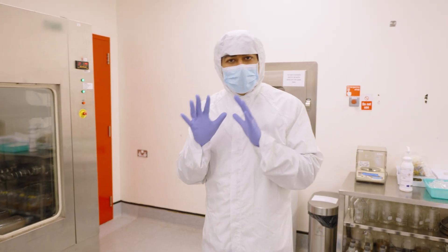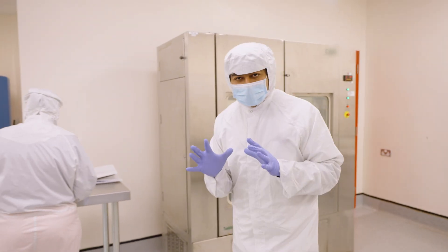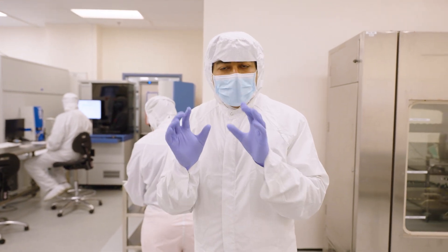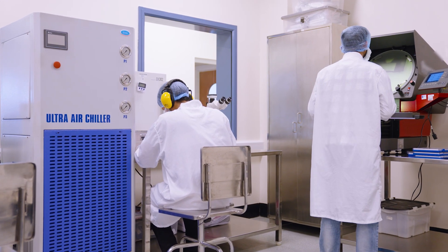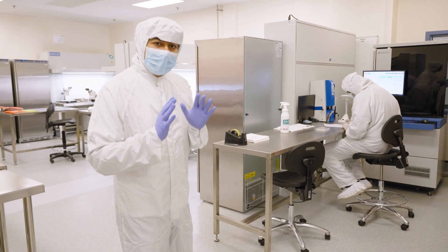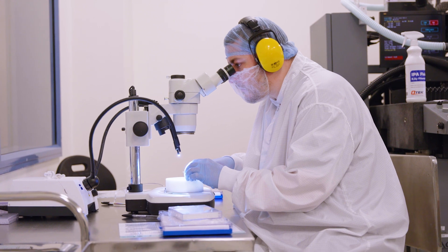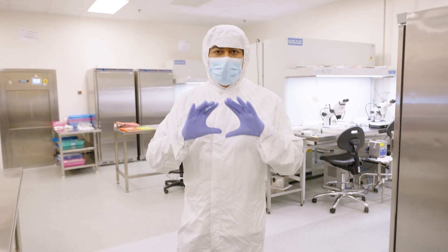Once this step is complete, we move to the next step, which is inspection and verification, where it is checked that the final product of the lens that has come out is absolutely perfect — no defects, power is perfect, shape is perfect, size is perfect. All of this is checked here. There are different machines at different steps where this inspection and verification happens. After the first step is completed here, the lenses are brought to the next step where all checking, inspection, and verification is done. When the final product is ready and verified that everything is absolutely perfect, it is then sterilized.